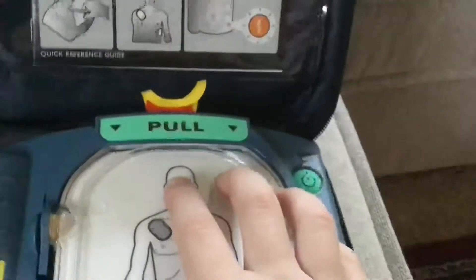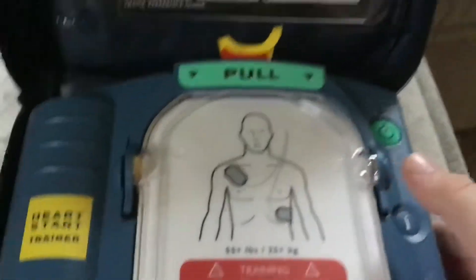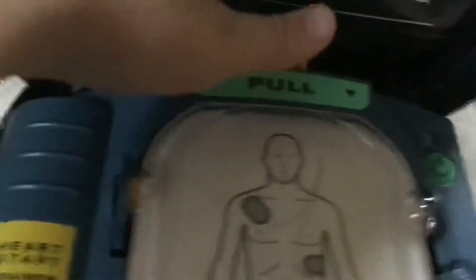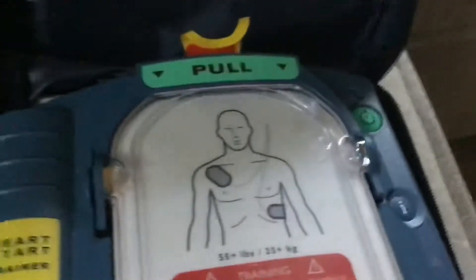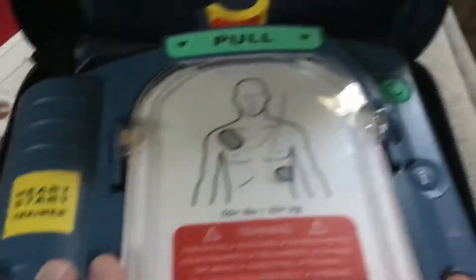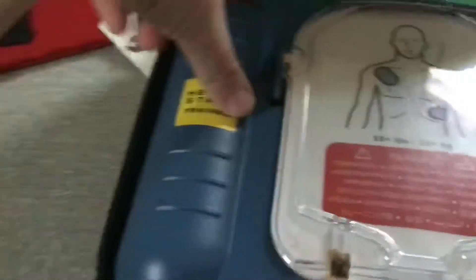What you're going to do is take out your device. You could just pull it from there, but the real one doesn't really have room, so you're probably going to take it out. Then turn it over, and there's the battery.